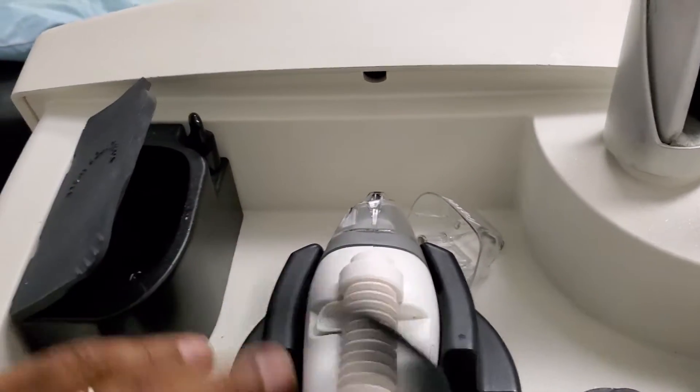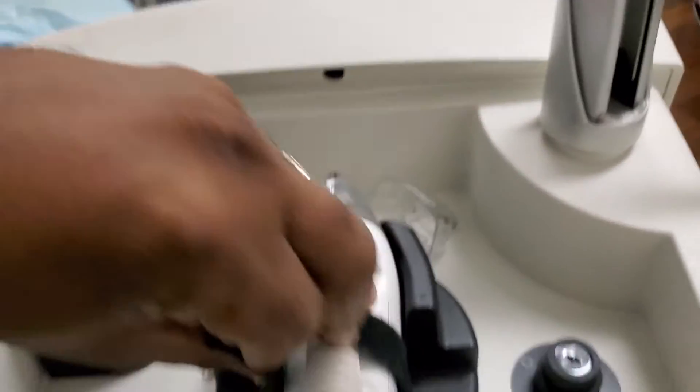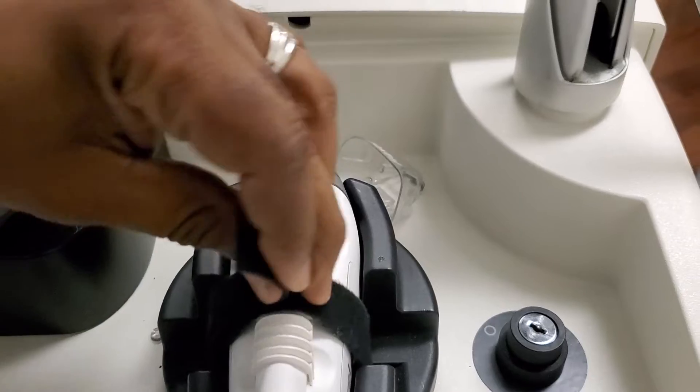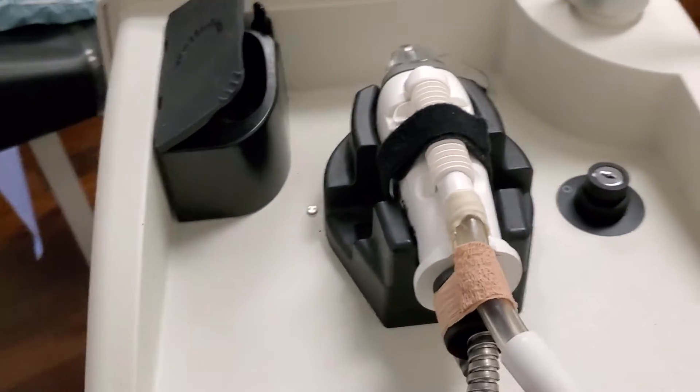All you do is just secure the handpiece just like this. That's the proper way that it should be left.